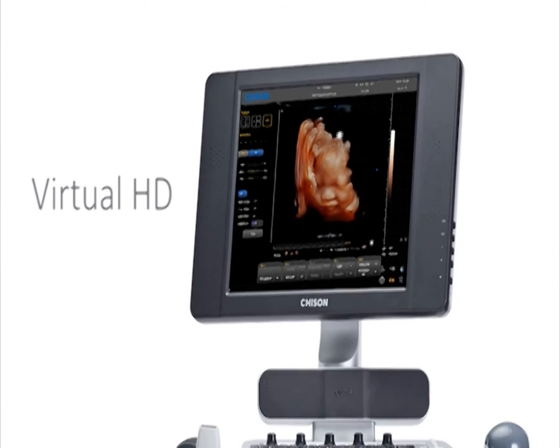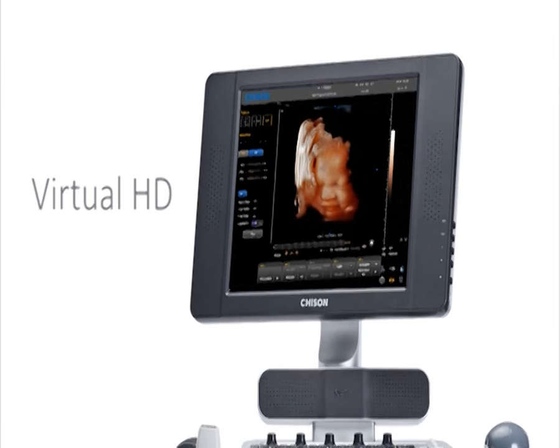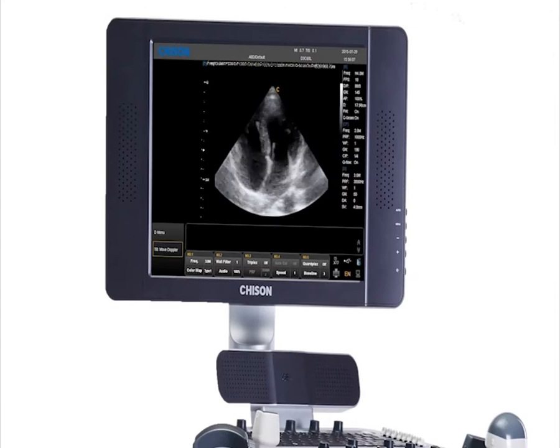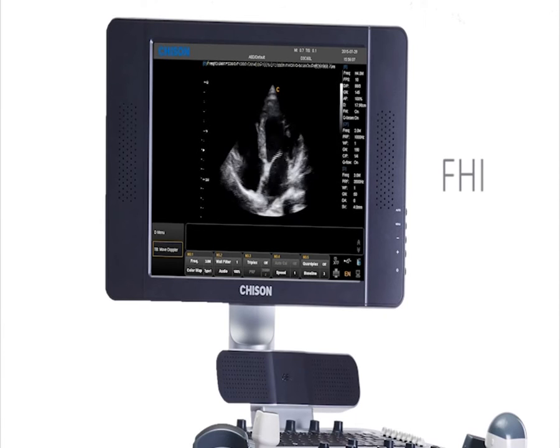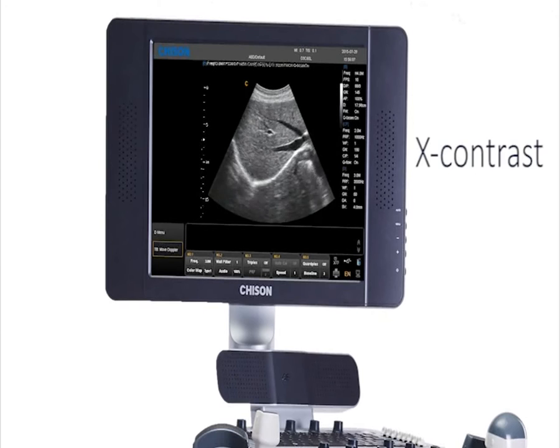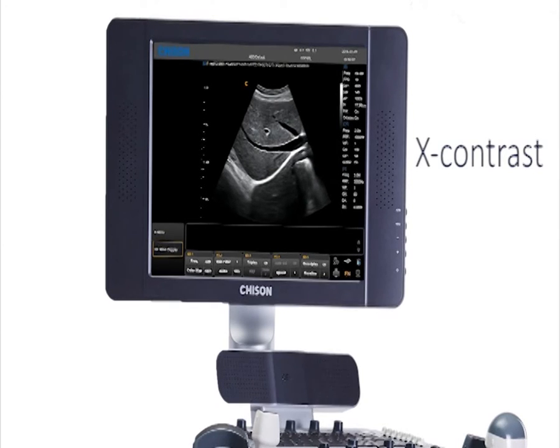Virtual HD uses movable light from different directions to make the fetus's face more vivid. FHI — push this button to open it, especially for cardiac examination. Xcontrast — push this button, specialized for liver scanning.